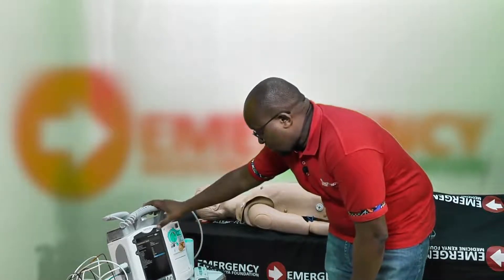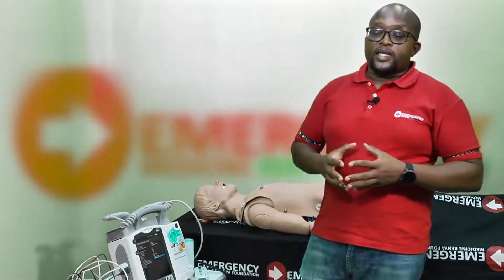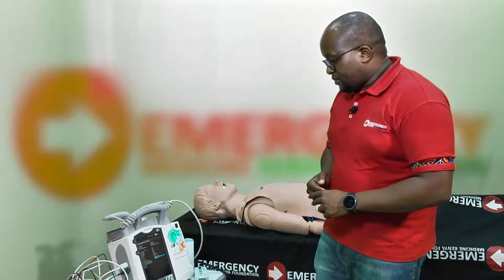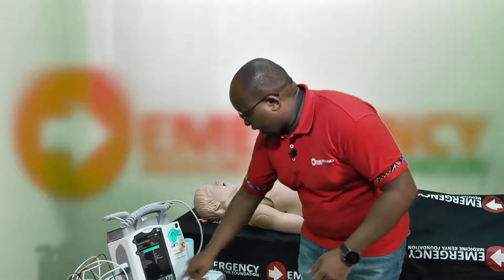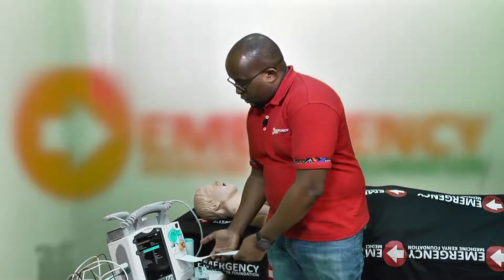The machine has passed the different checks, which is great. Ideally you should check the defibrillator in battery mode, since you're not always connected to power — but don't forget to reconnect the power afterward, as the defibrillator must be fully charged at all times. The operational check has passed and the machine allows me to print a record as proof that I have checked it.